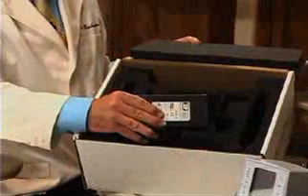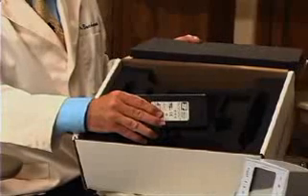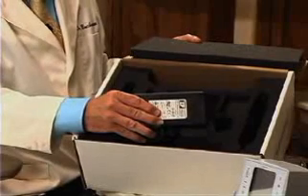This is the plug — very high-grade. This is the DC converter. I usually put that behind the cabinet or in a place that doesn't show. It provides low-voltage current to your System B elements unit so that it's safer in the operating environment.